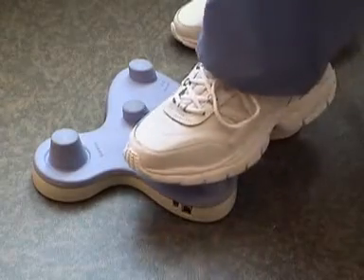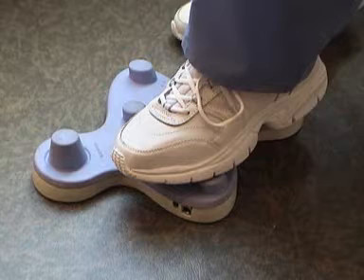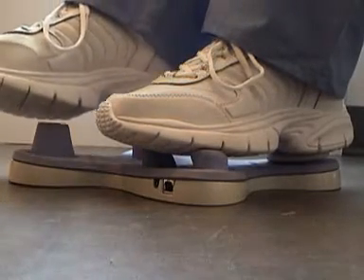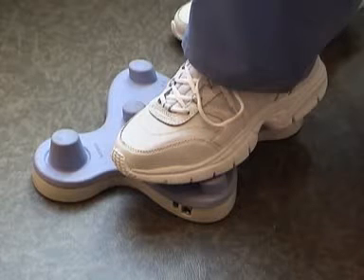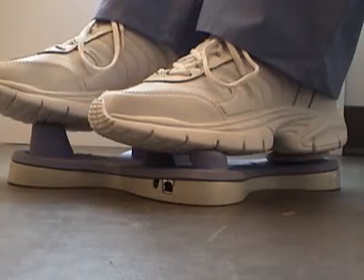When you're first starting out you might want the mouse a little bit slower. To slow down the mouse, press the left two buttons down and hold them there, and at the same time press down on the joystick with your other foot. As you gain more experience you'll probably want the mouse to go a little bit faster. To speed up the mouse, press the left two buttons down and then push up on the joystick with your other foot.